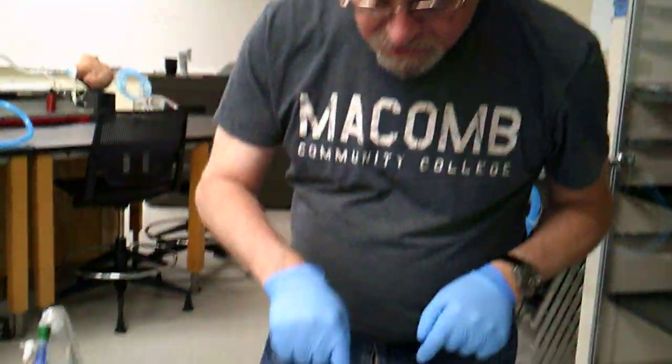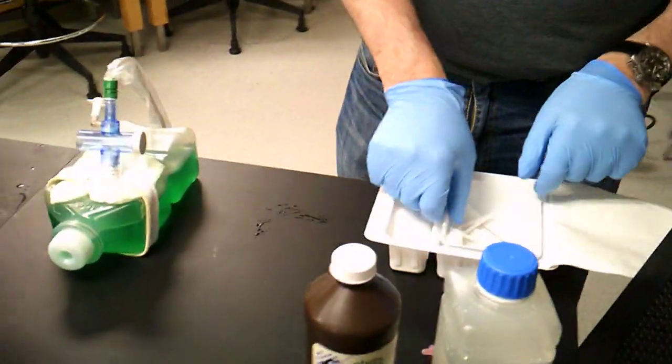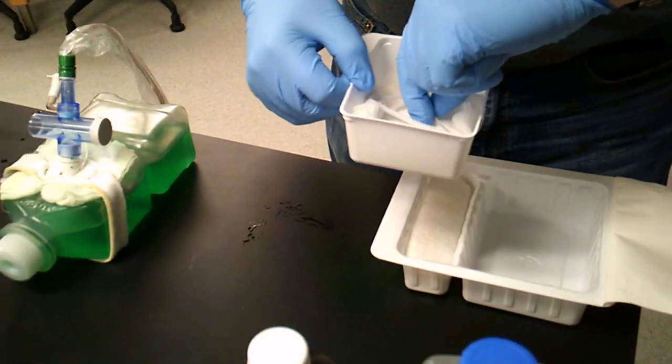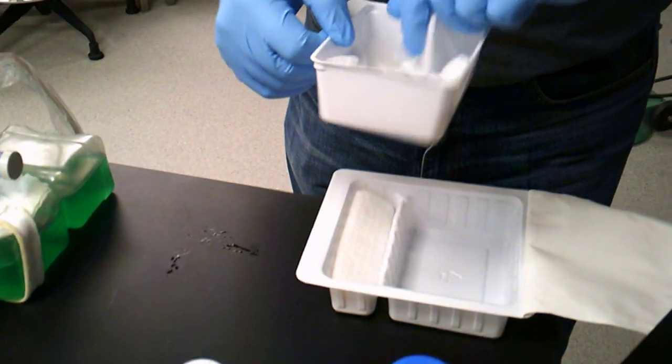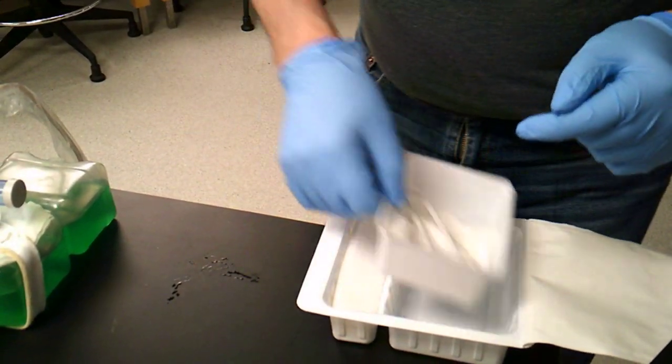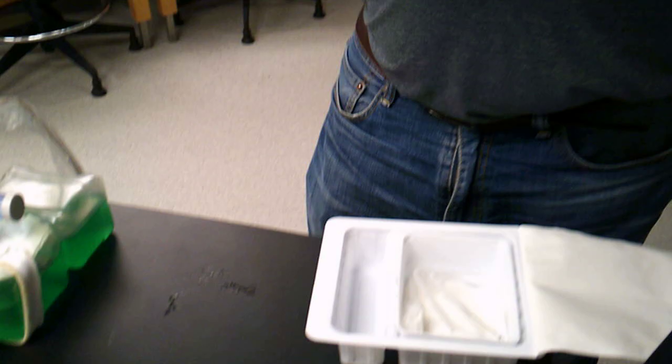So I got those. Inside of our kit, we have a small tray with a brush, some pipe cleaners, and some Q-tips, along with some gauze pads. We also have a sterile dressing.